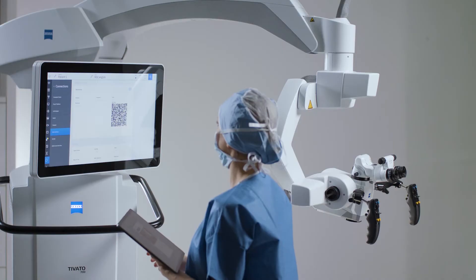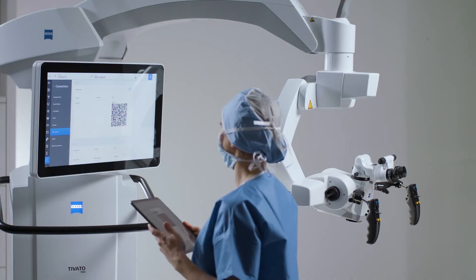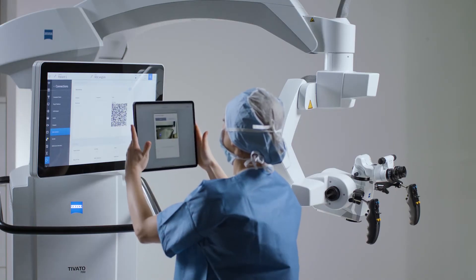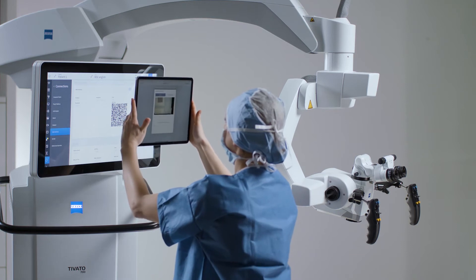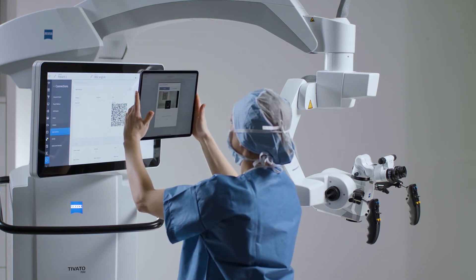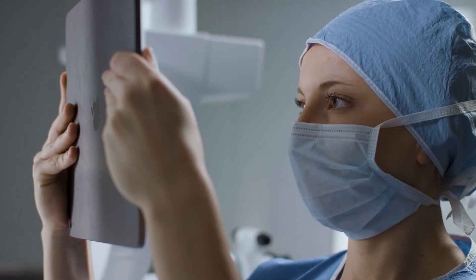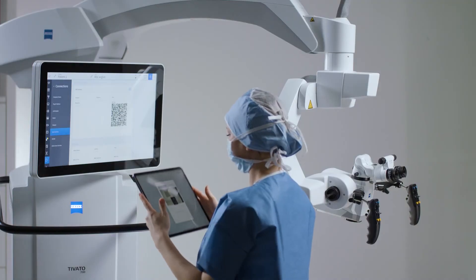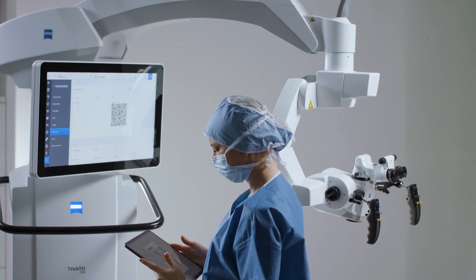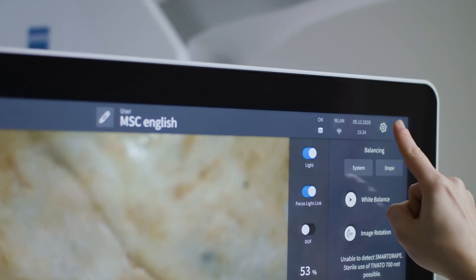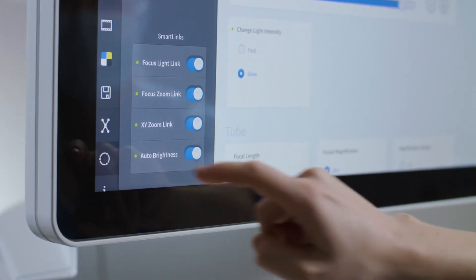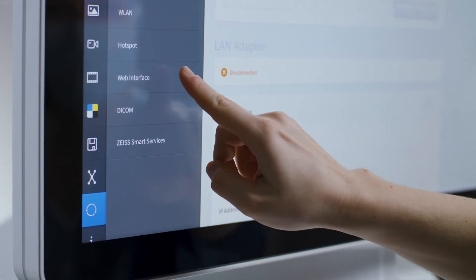To connect the Zeiss Connect app with Tivato 700 from Zeiss, you can use the Manual connection option, supported with a QR code, to import the corresponding connection settings into the app. The QR code can be found in Settings, Connectivity, Web Interface.